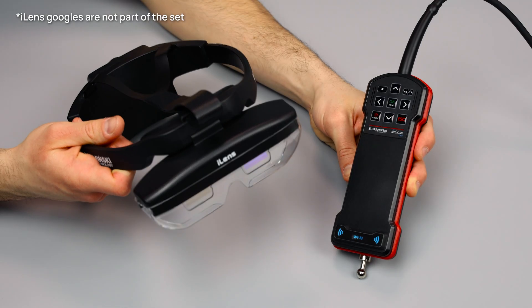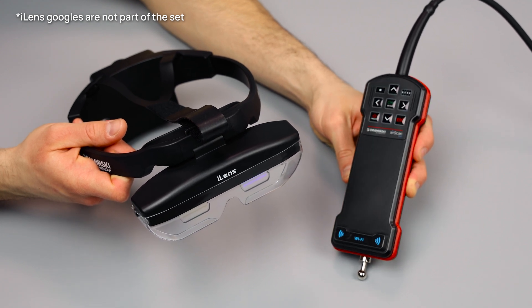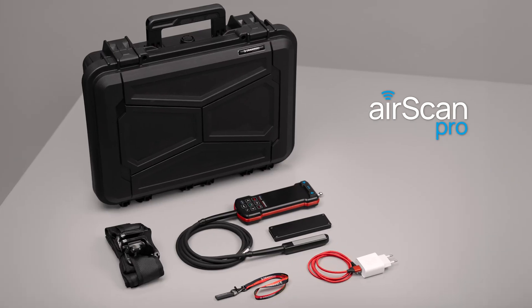Configure the set with eye-lens wireless goggles powered by advanced augmented reality technology to give you better results and unparalleled freedom and comfort. Stay ahead of the game with superior image quality and sensitive Doppler mode.